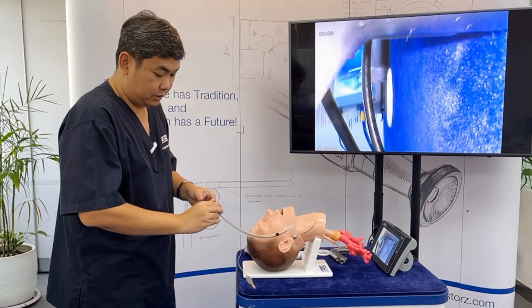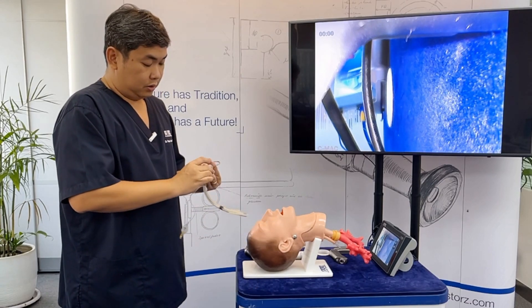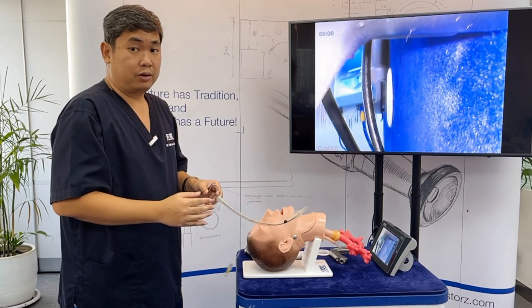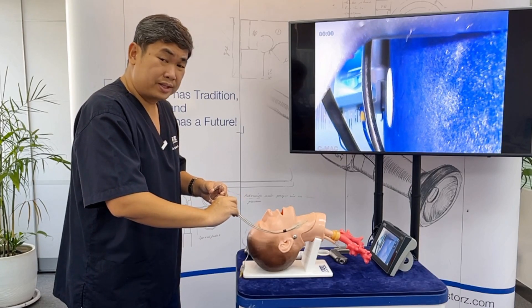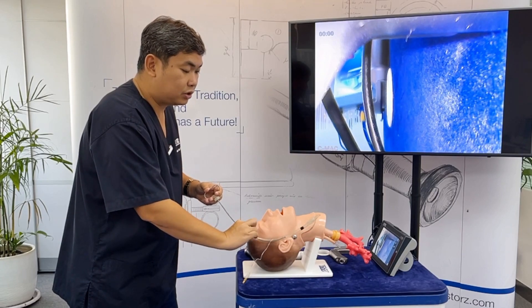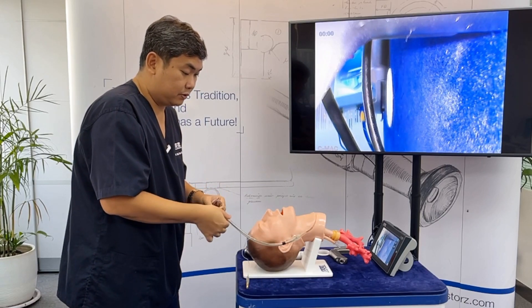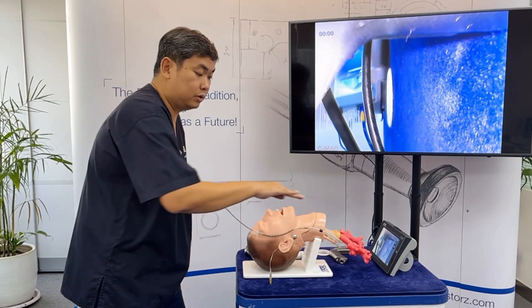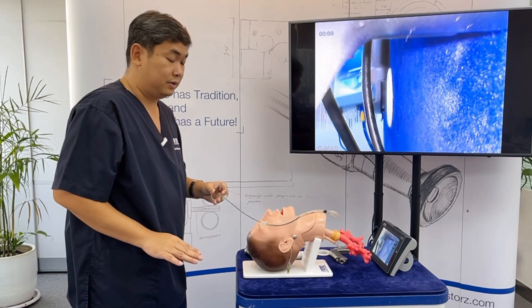Normally, if you push down the ET tube, especially with a hockey-stick or curved stylet configuration, the tube tends to go anteriorly. What you can do is twist the ET tube while pushing it down so that rather than going up, it will go down and follow the anatomy of the trachea.